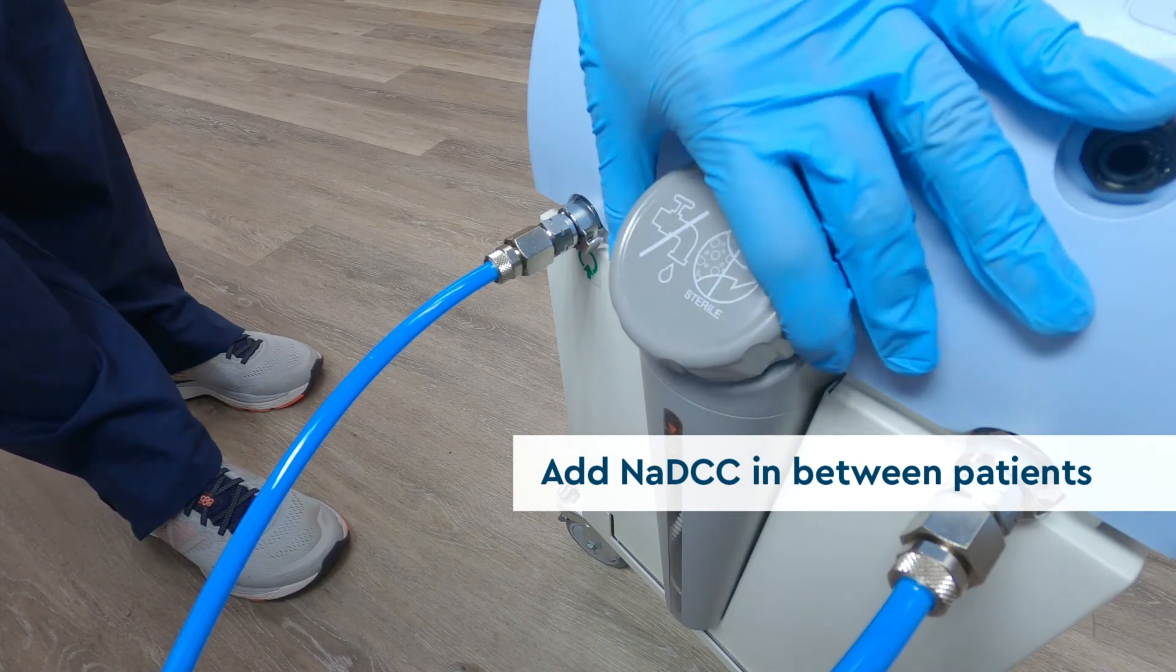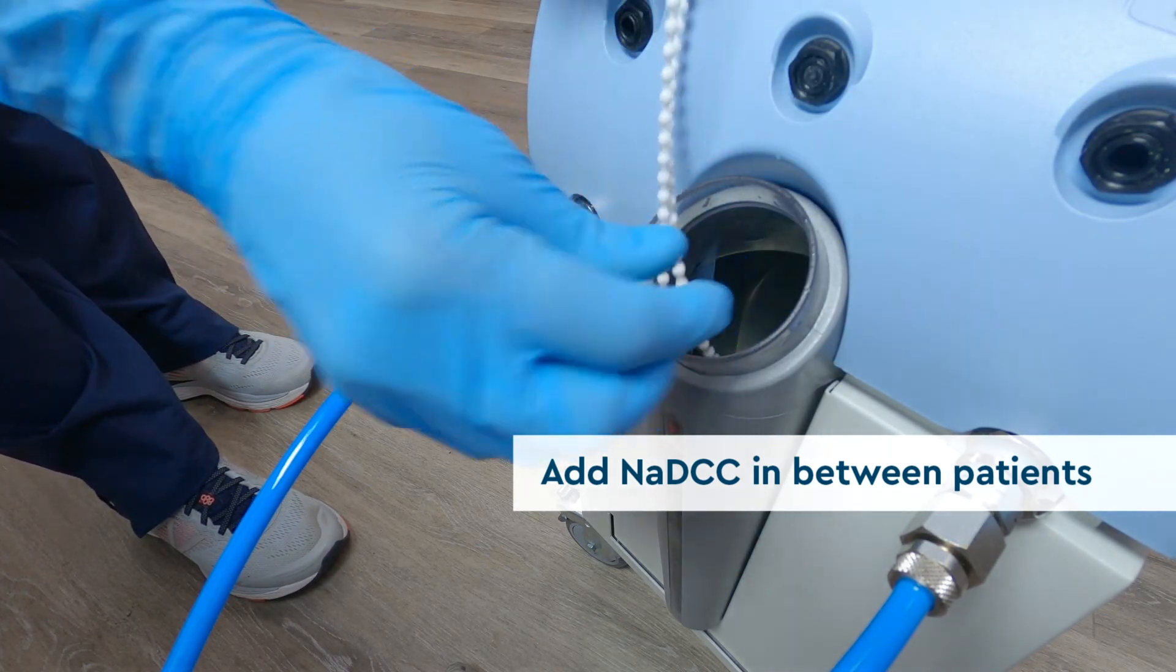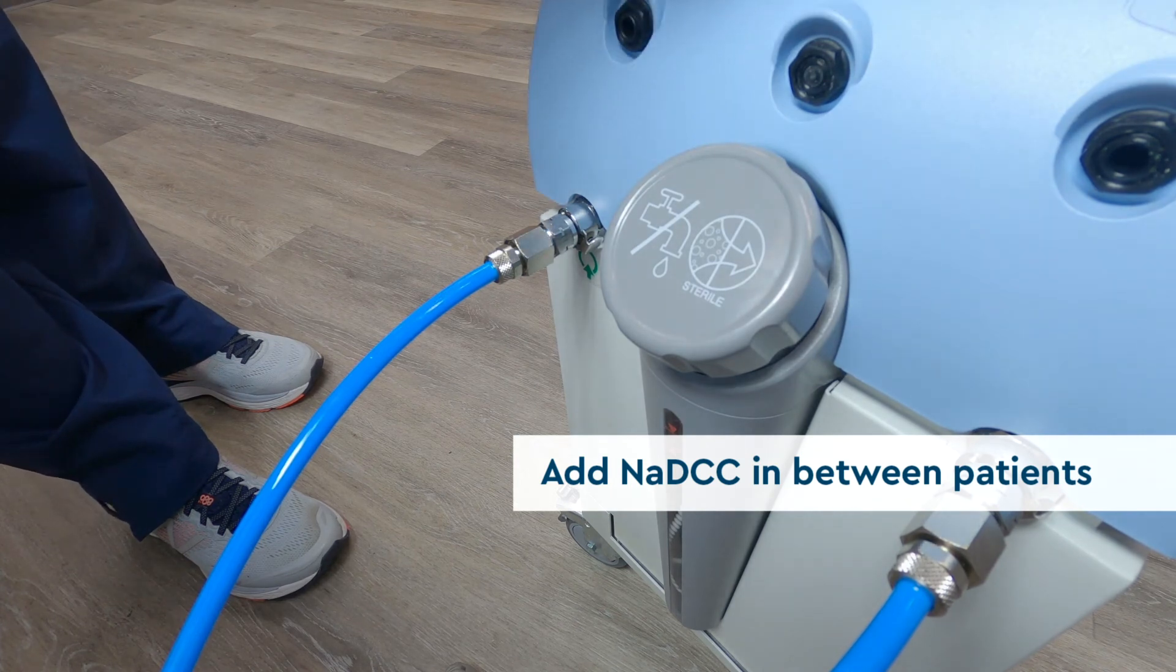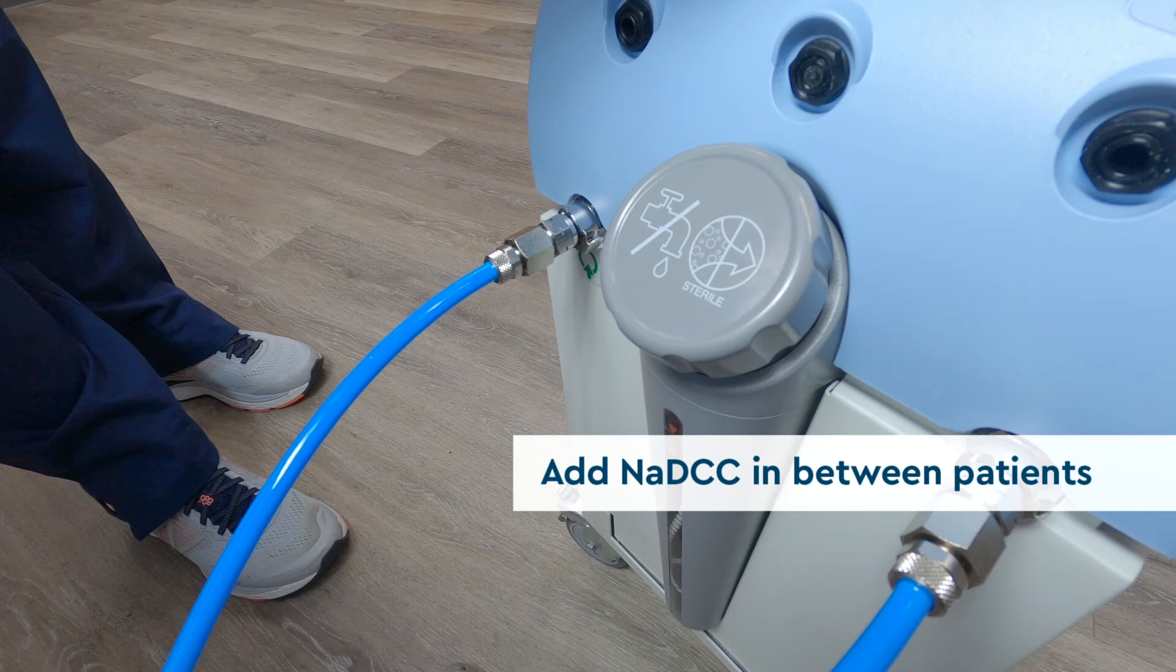When you finish using Alon, drop NADCC into the 6.0 liter, 1.6 gallon water tank, as per the NADCC manufacturer's instructions, and run the machine for 30 minutes.